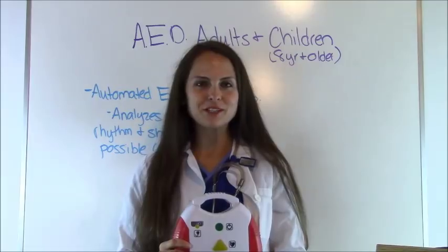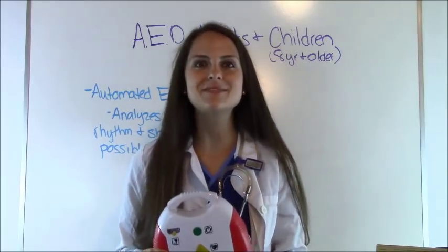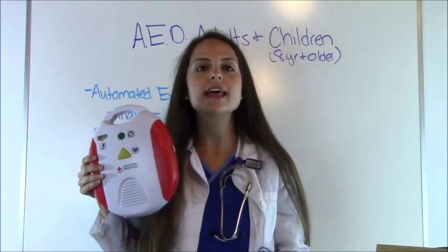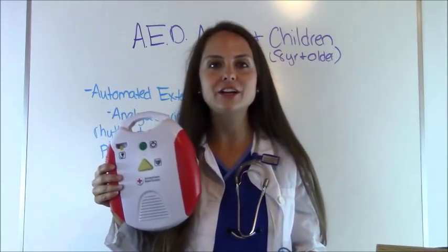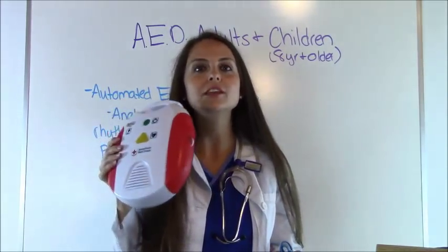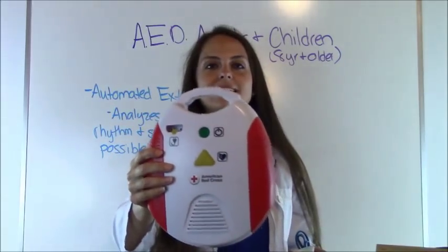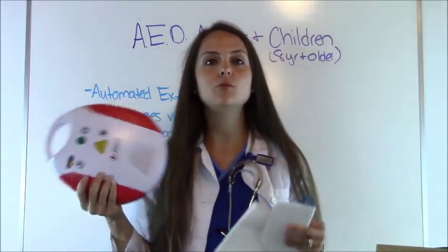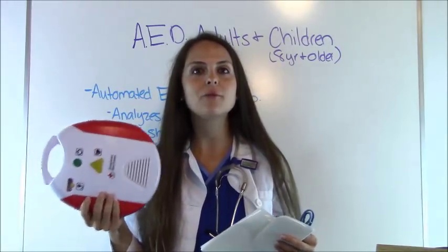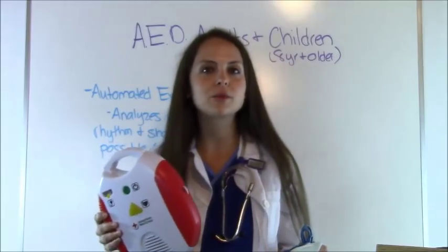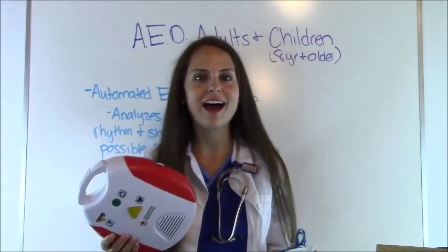Hey everyone, it's Sarah with RegisteredNurseRN.com and in this video we're going to go over how to use an AED on an adult and a child eight years or older. If you are going to be recertifying for your CPR class or taking CPR, you will be learning how to use one of these. This is a sample training device, and I wanted to make this video to help you brush up your skills before recertification so you can be prepared before you go to class.